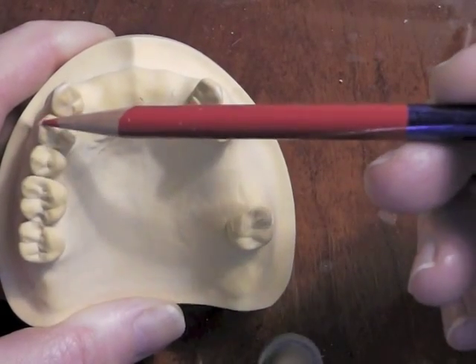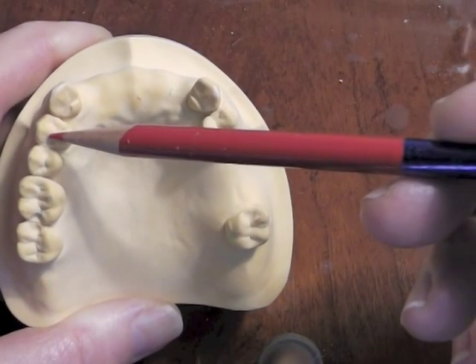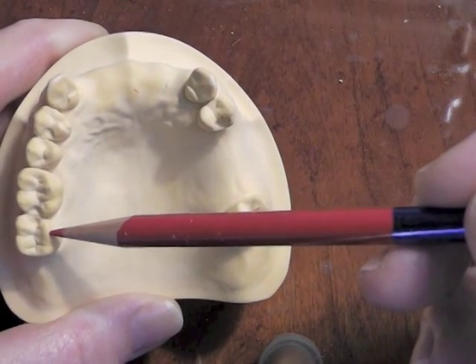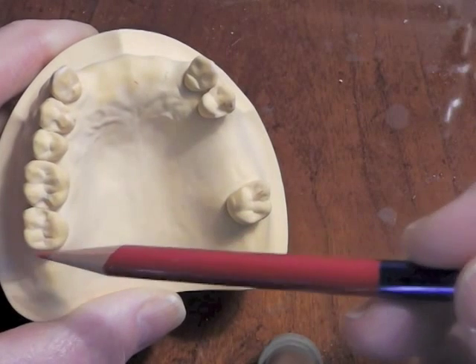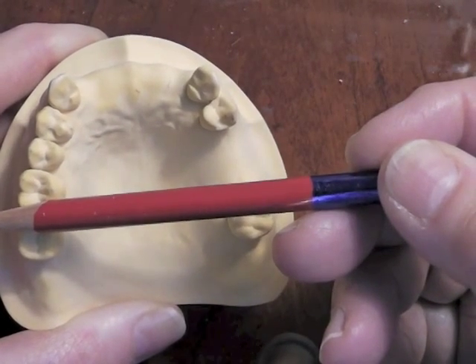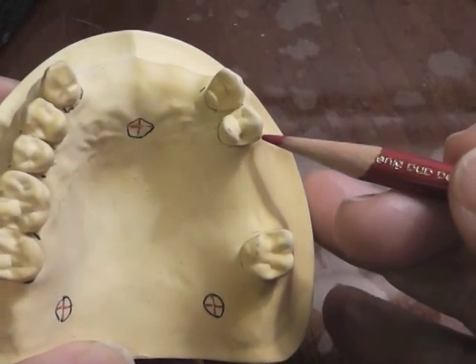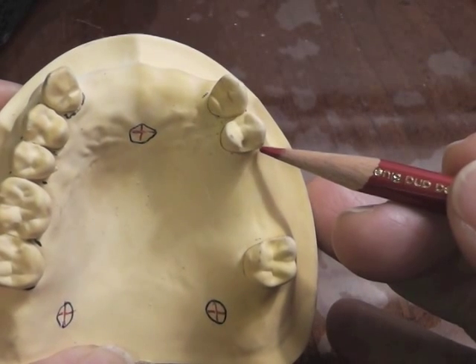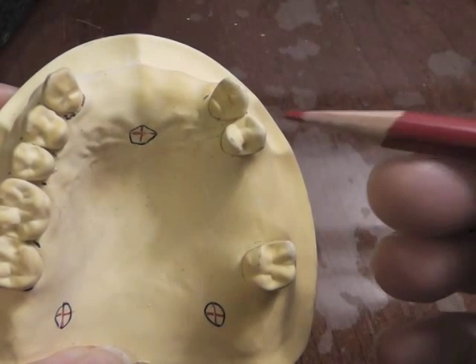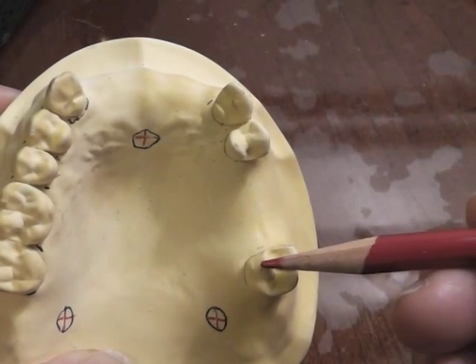On the other side, we're going to balance it. So we're going to have a direct retainer on our first premolar if we have retention, and we're going to have a direct retainer and clasp assembly on this second molar, and it balances out very nicely. One additional thing to keep in mind is that for this Kennedy Class III, we can use rigid clasping, so our clasp of choice will be the cast circumferential on these two abutments.